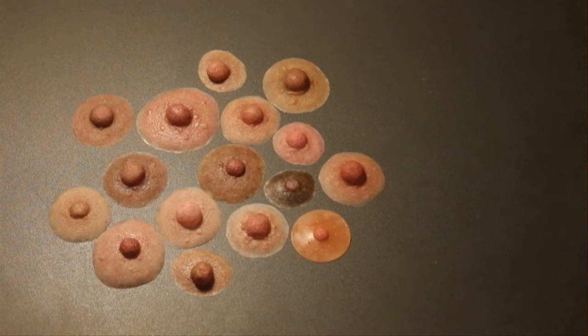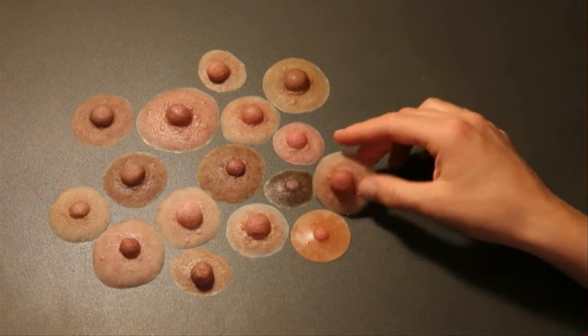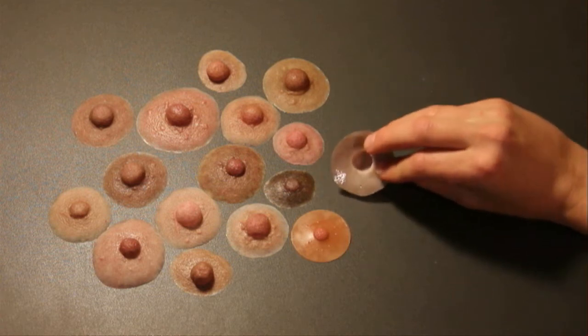Our prostheses are made with tear-resistant silicone and polyurethane. These materials give our prostheses stronger, thinner edges.